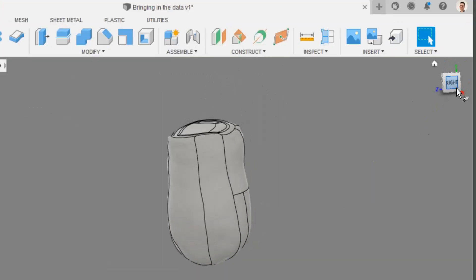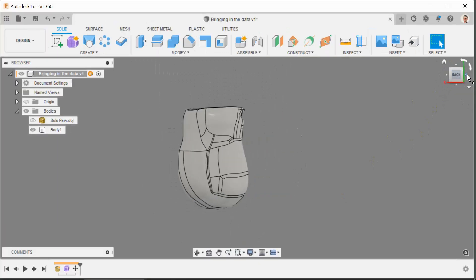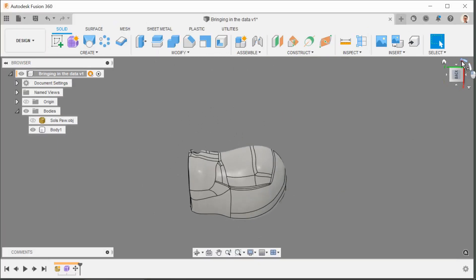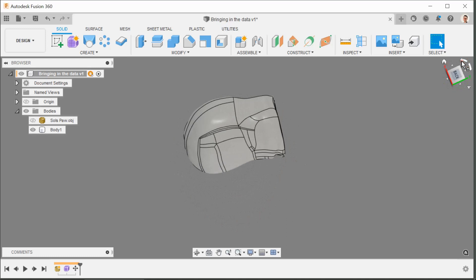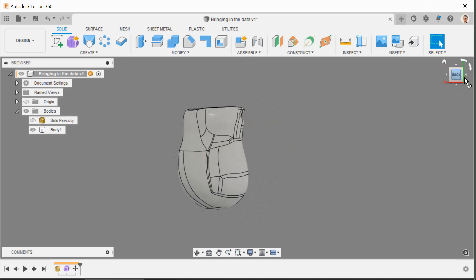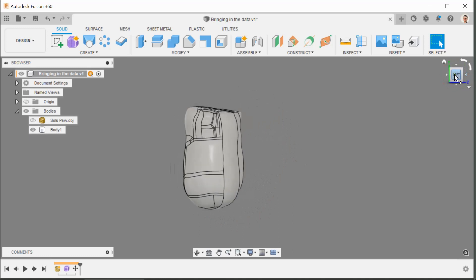Likewise if you click on individual faces or use the cursors and arrows you can navigate using this box up here which is a really smart invention.